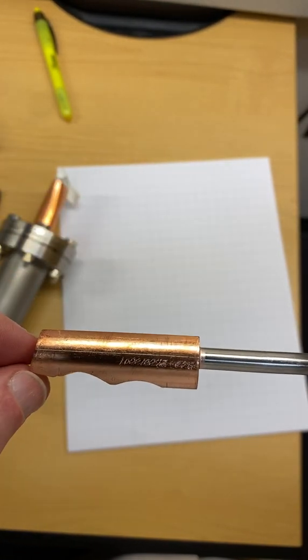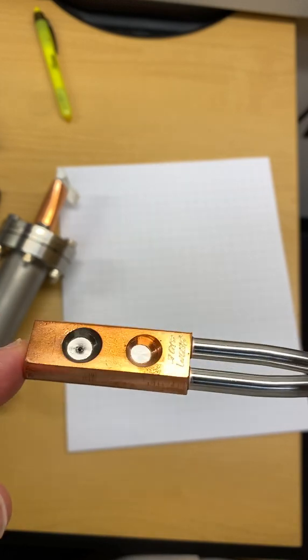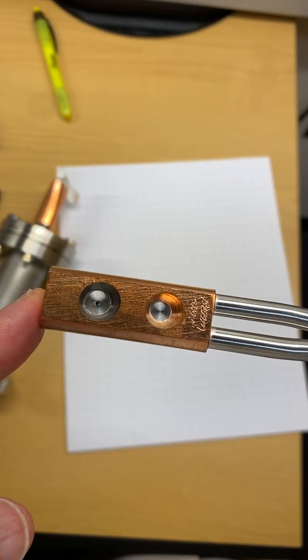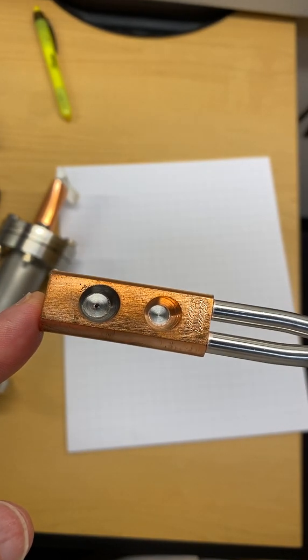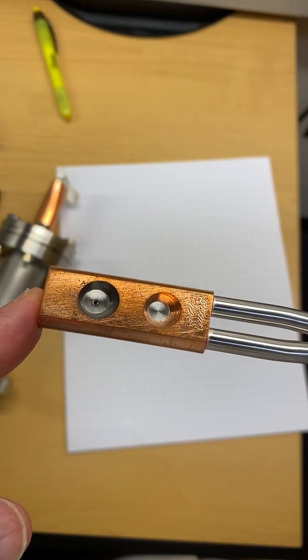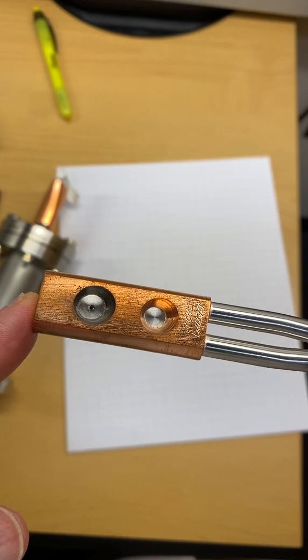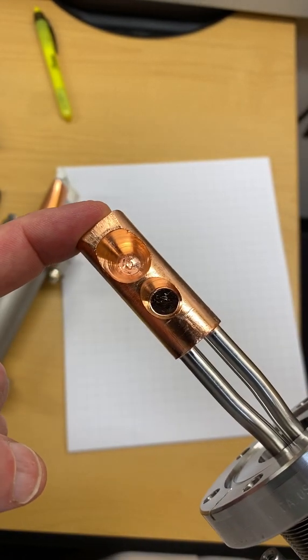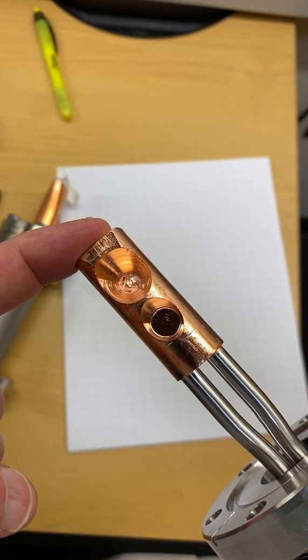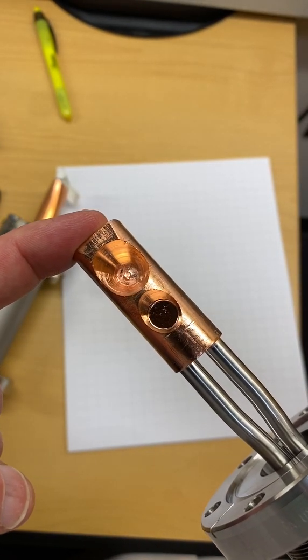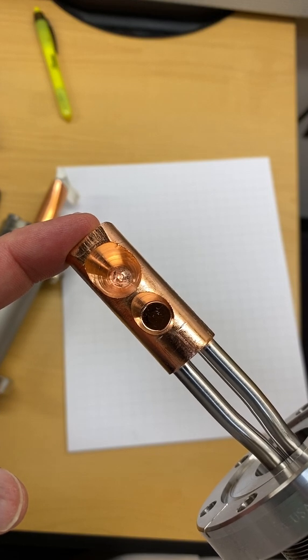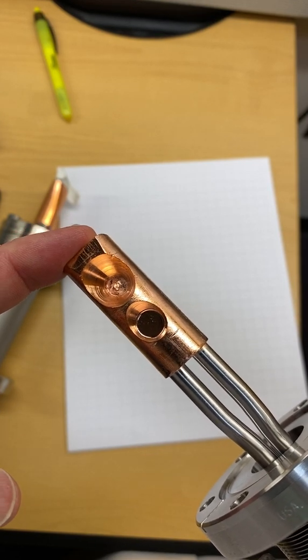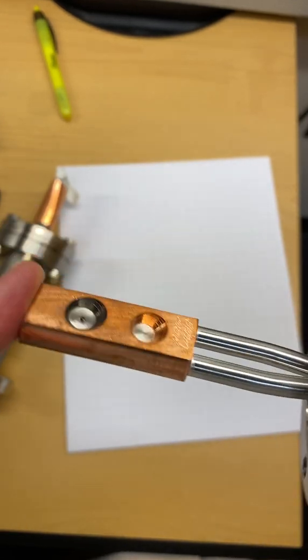It needs to be thicker. Higher energy electron beam needs a thicker target to completely stop the beam. But you can see some of it still drilled away because that excess copper wasn't needed to cool the target.